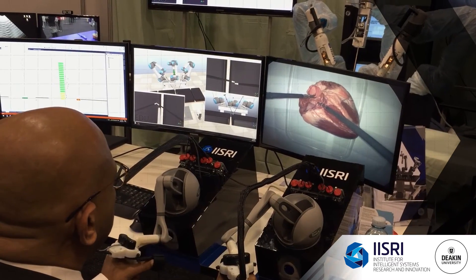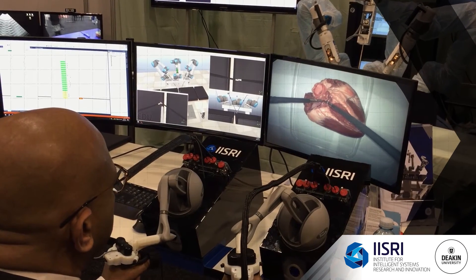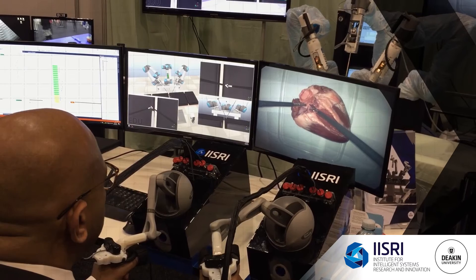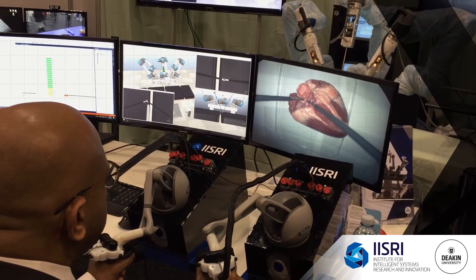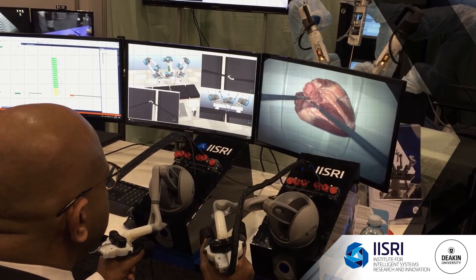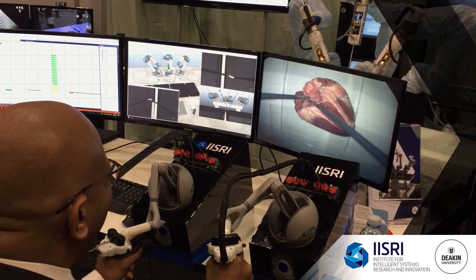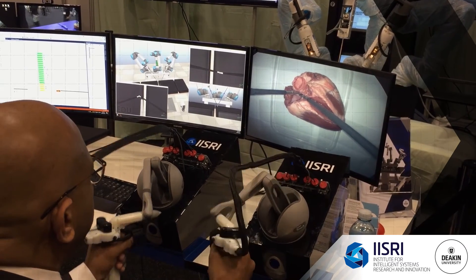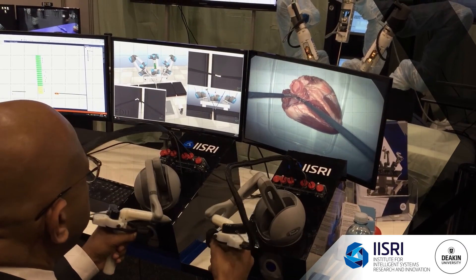All can be adjusted — the amount of force that is getting back to your hand. I actually like your hand-to-pull system. It is nice, but with the other system the clutching can be quite cumbersome. It's very easy — you just take your foot out and then you zero whatever position you want to do.